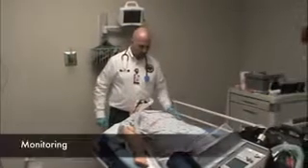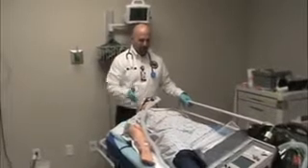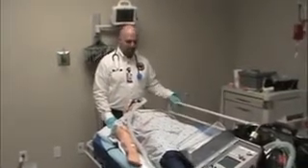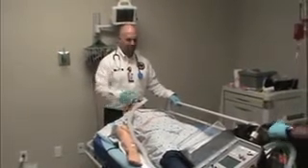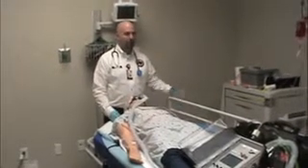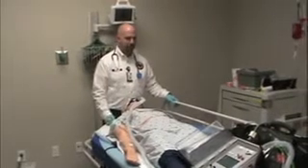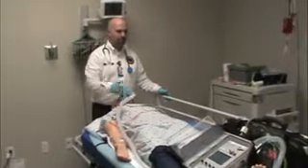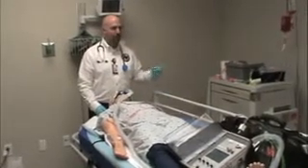You always want to make sure that the patient is fully monitored. The gold standard for monitoring a patient on the ventilator is for them to have pulse oximetry in place and for them to have end-tidal CO2 monitoring. A colorimetric device, although it's okay, doesn't last very long, and if it gets wet, it's pretty ineffective. The nice thing about having a fully invasive monitor is that we have end-tidal CO2 available. Your end-tidal CO2 should be on the circuit so you can trend their CO2 and see how well they're oxygenating and ventilating.